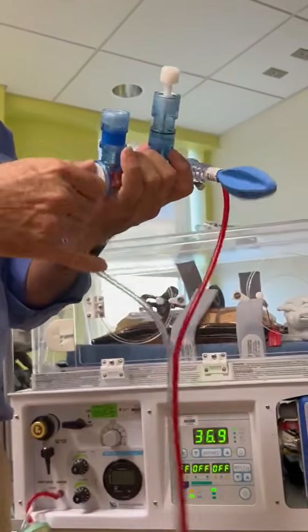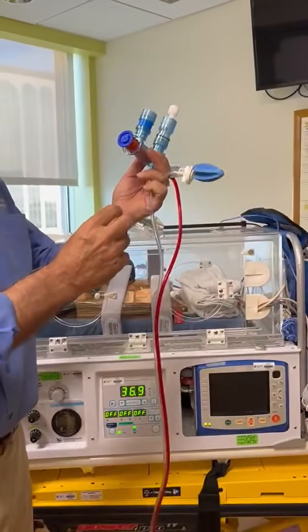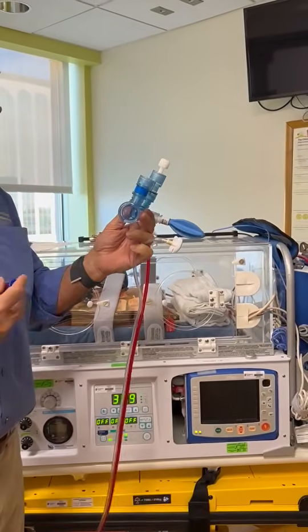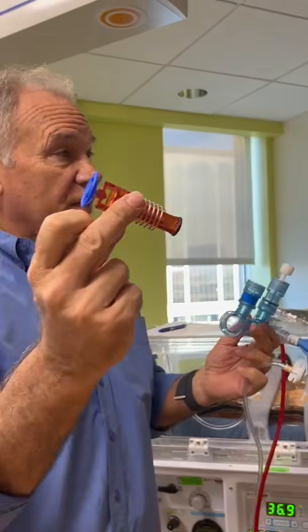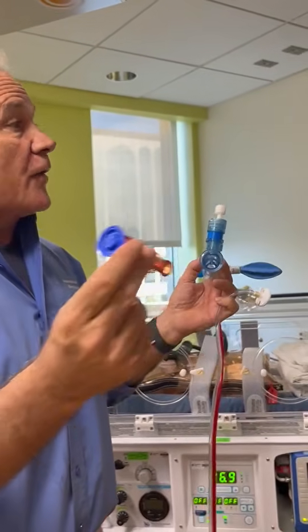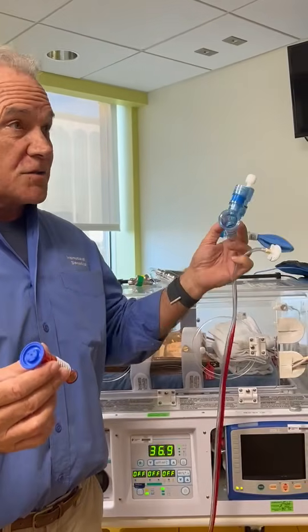So what I'm going to do is take apart the inspiratory limb. And again, this is the phasitron on my left hand. And y'all know what this is? This is called the venturi. So the venturi, and then y'all know about the different types of ventilators, right? Because y'all have oscillators and jets here.